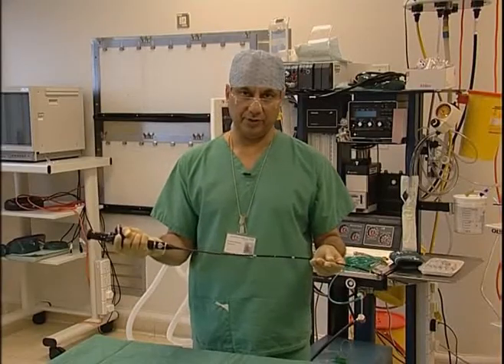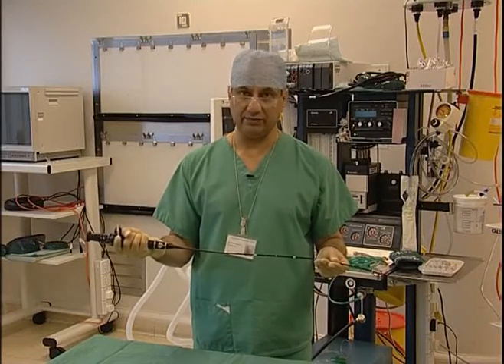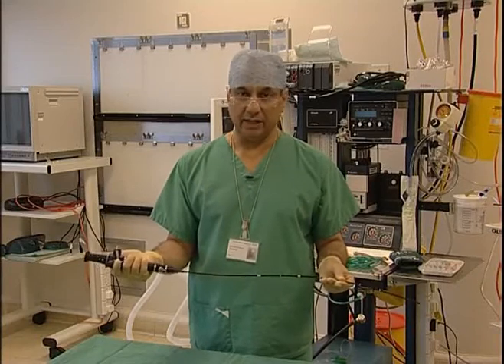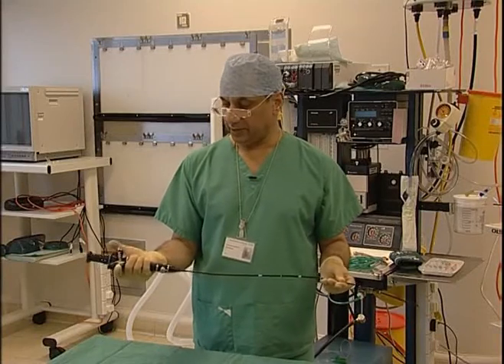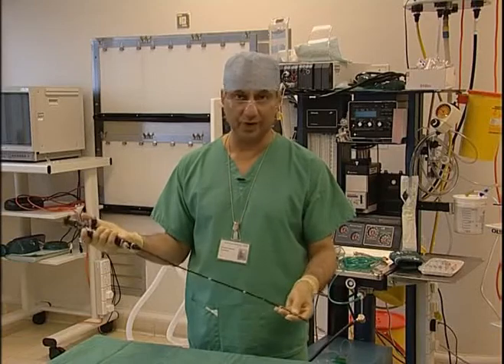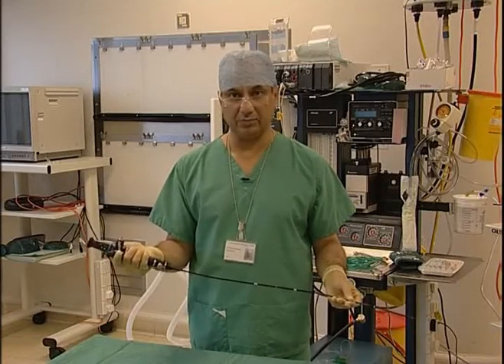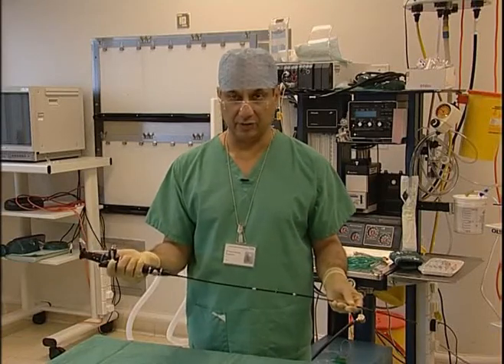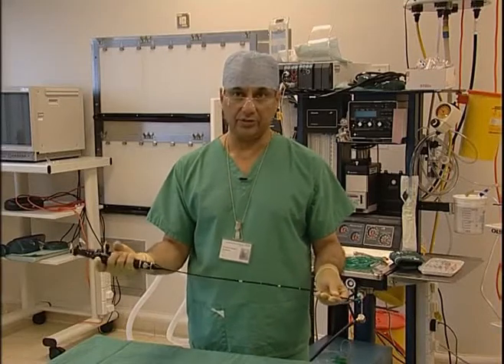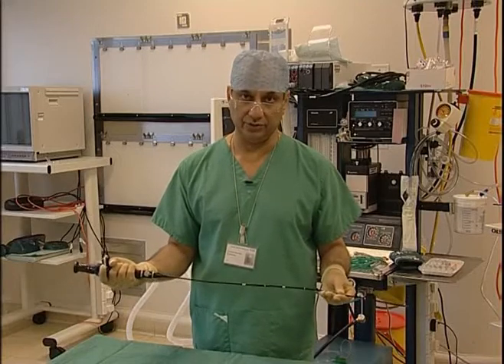Before we use the fibreoptic scope, we need to check seven things: connect the camera, connect the light source, focus the camera, perform the white balance, make sure that the orientation mark is at the 12 o'clock position, connect the suction, and load the endotracheal tube before we are ready to use it.